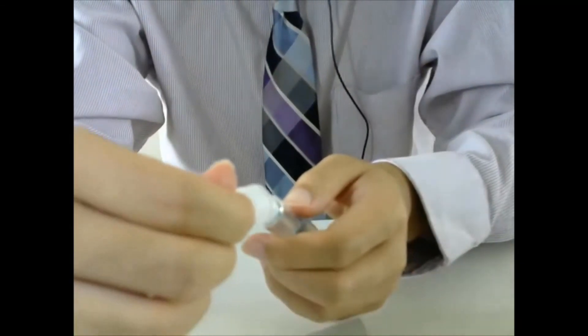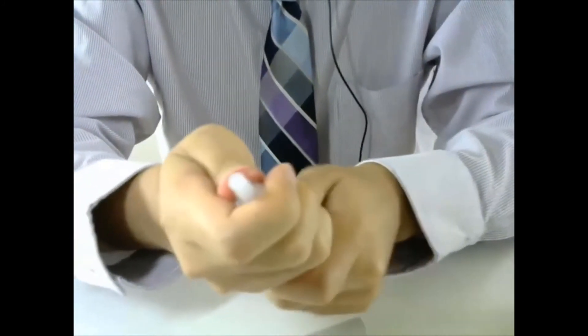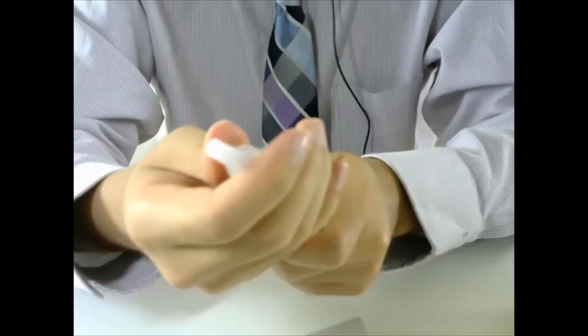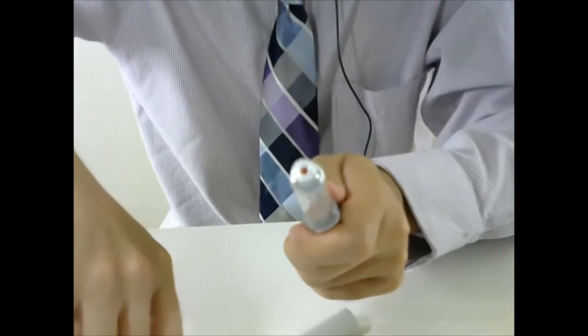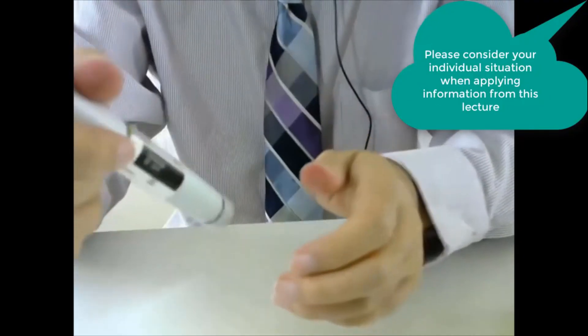Now I will put the cap back on and remove the needle. And put the cap back on. That's it.